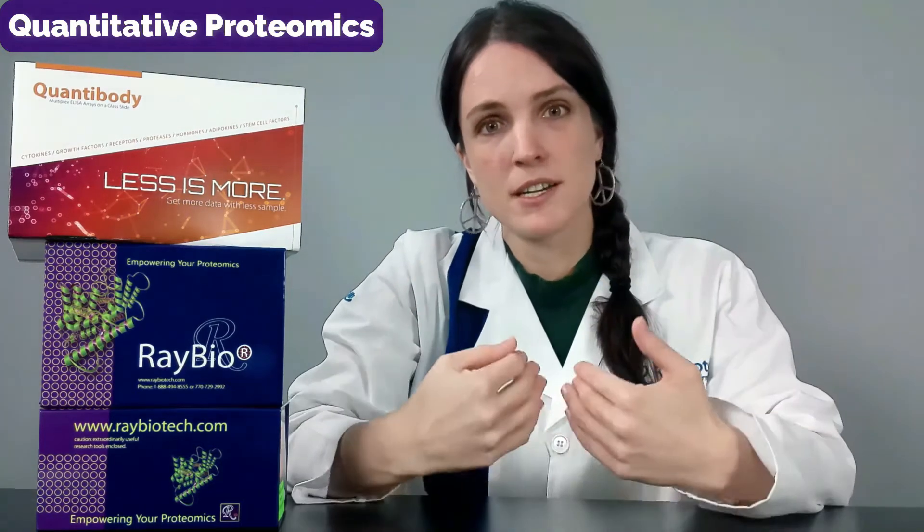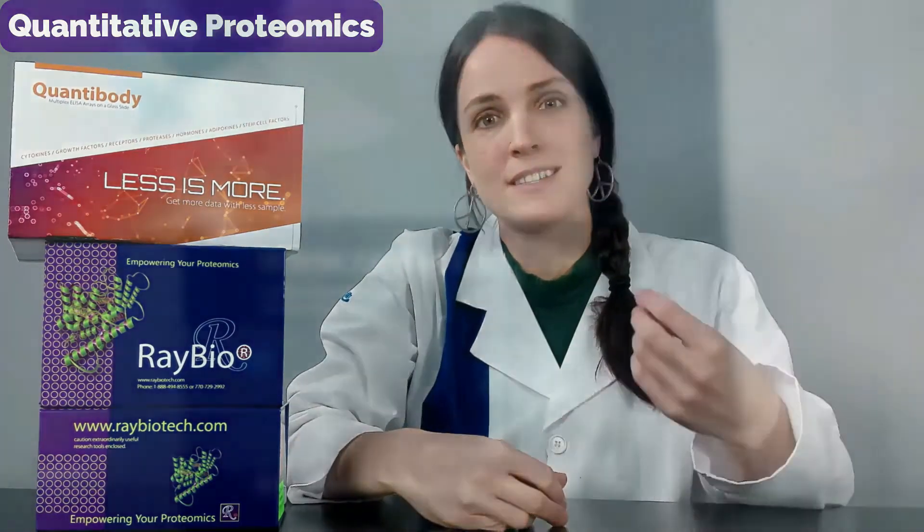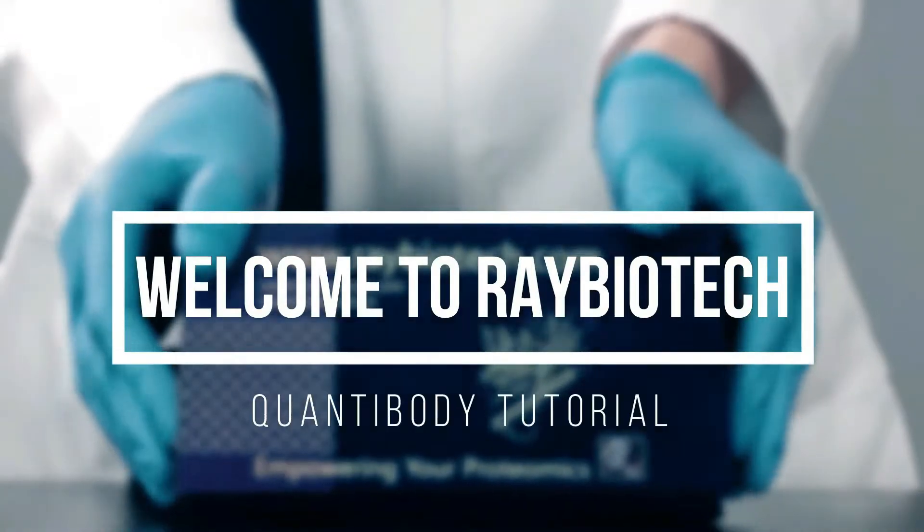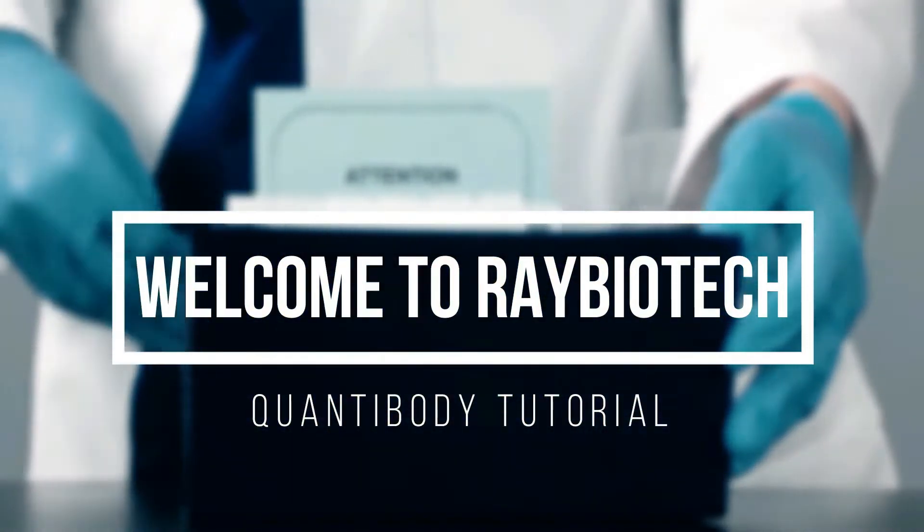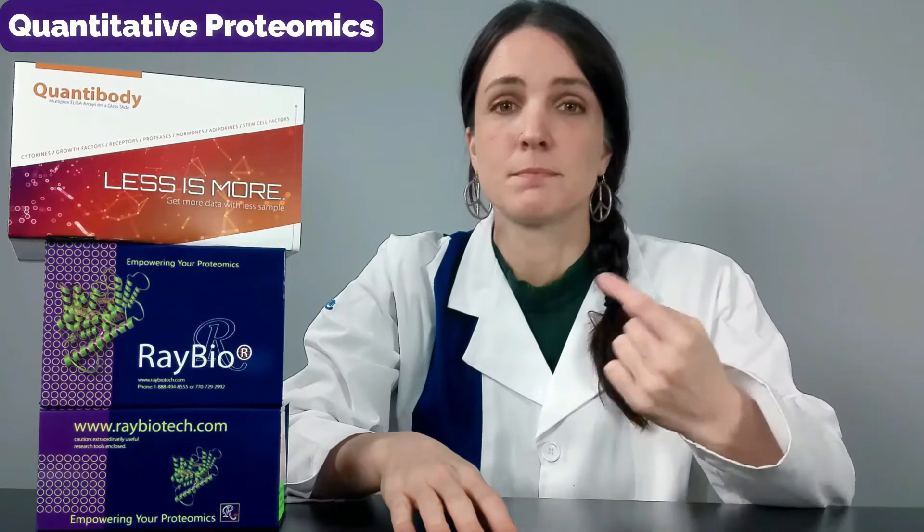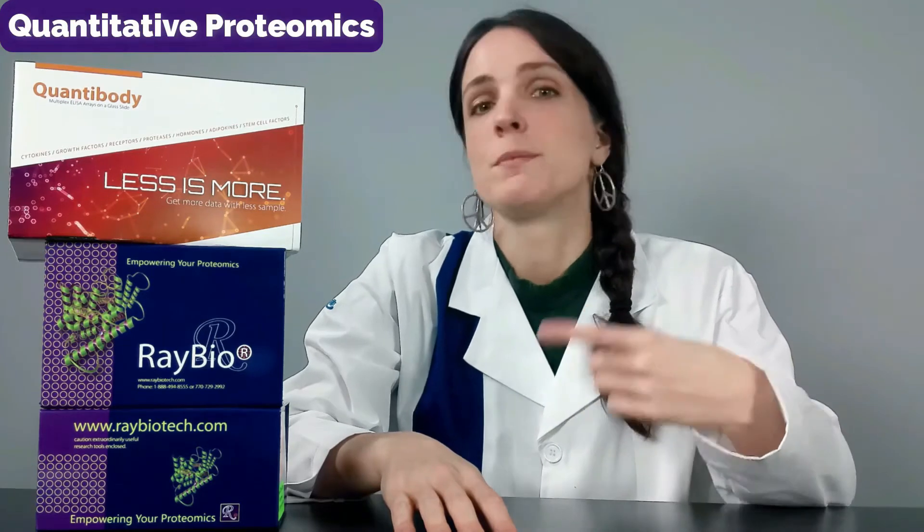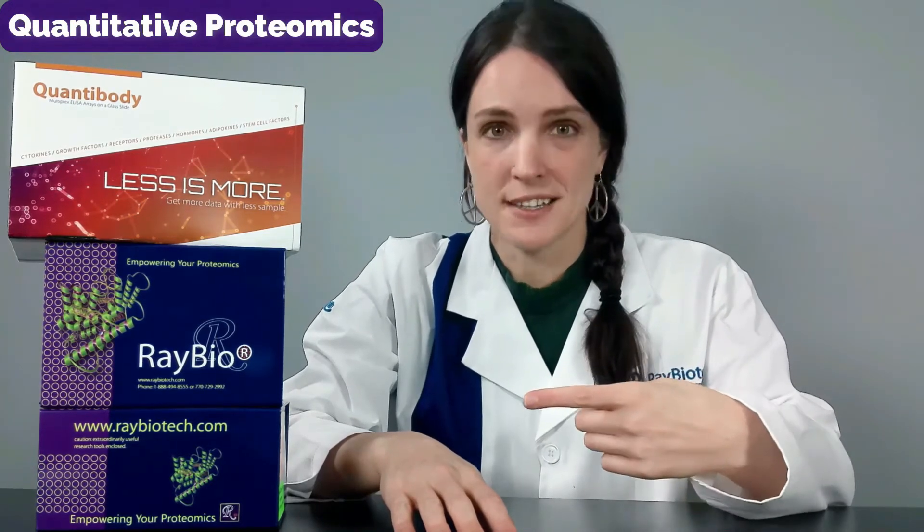Hi everyone, welcome to RayBiotech. My name is Brittany and this is your Quantibody Array Testing Kit tutorial. I'm your technical support guru and I have been in a lab for years, so I'm going to tell you how to get the best clean data possible from the RayBiotech Quantibody Array Testing Kit.